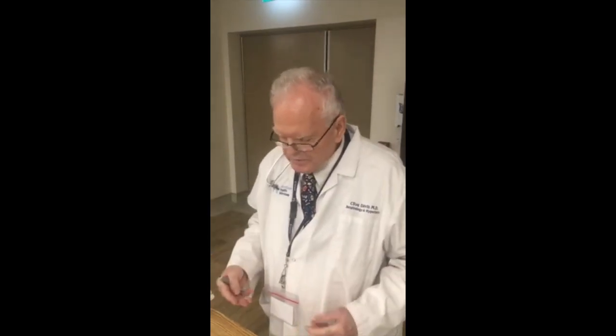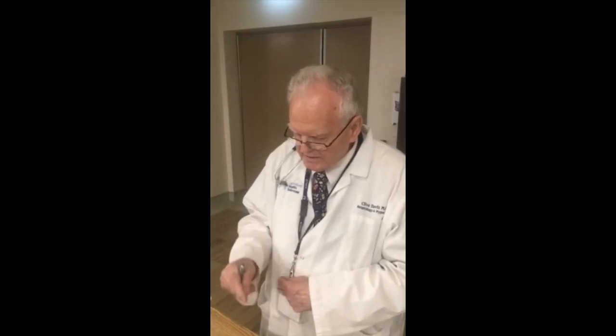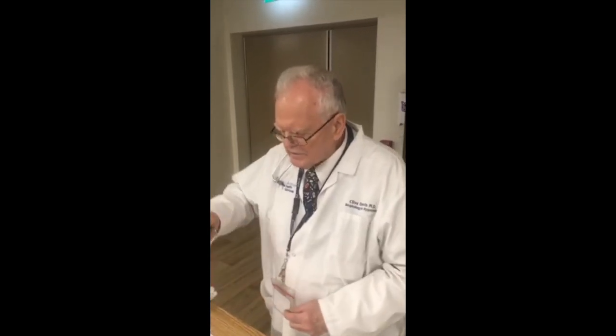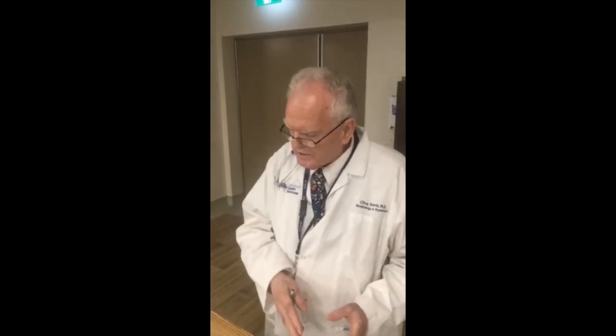In the case of the 5 liter per minute breath, we have 10 breaths per minute with a 6-second cycle length composed of 2 seconds inspiration, 4 seconds expiration. We've adjusted the lung volume or the tidal volume by turning up the flow rate as necessary, and the net volume per minute is 5 liters. So 10 breaths per minute times 500 mils is 5 liters per minute.